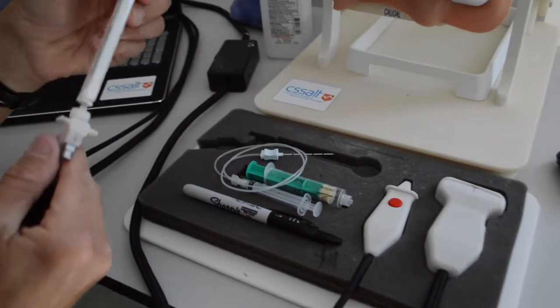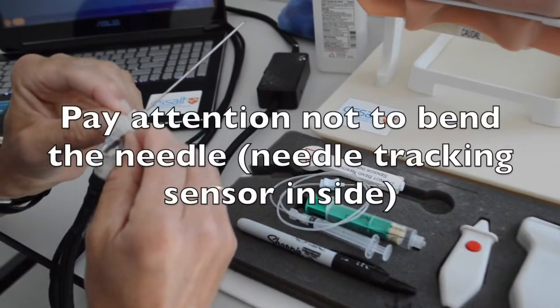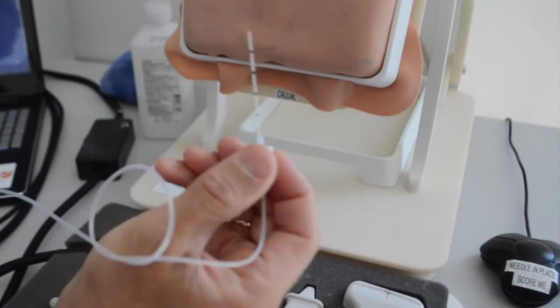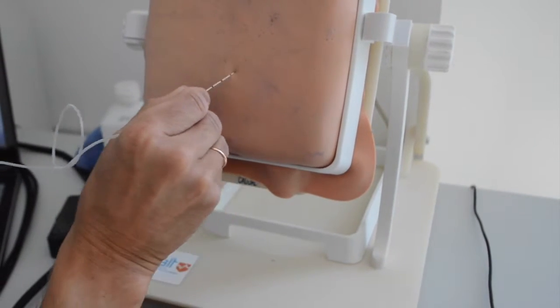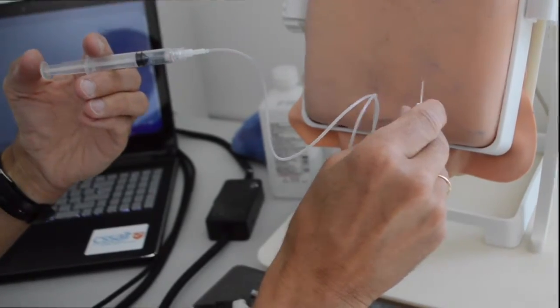The next tool is the block needle. This needle has depth marks and wings to hold. The next tool is the search needle. This needle is used for simulating numbing tissues and palpation. You can simulate injections with this needle as well by poking through the skin and injecting air.